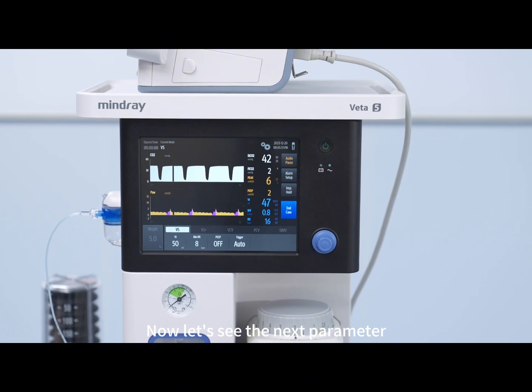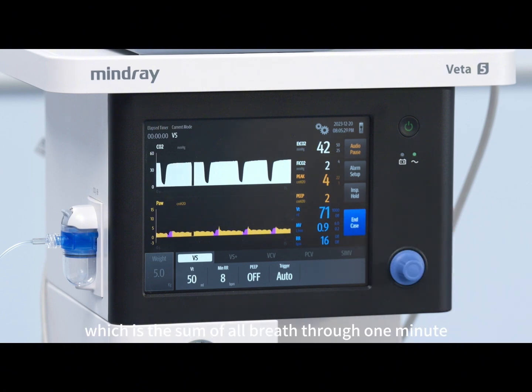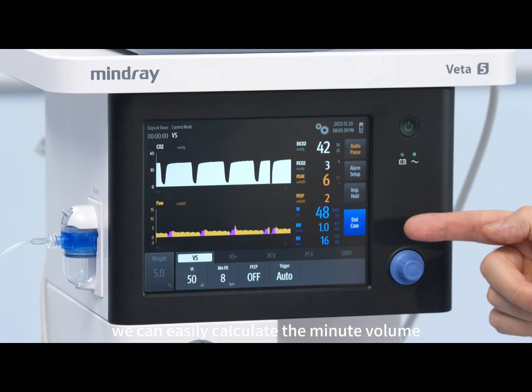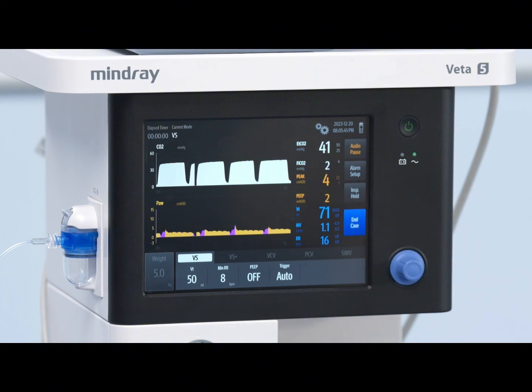Now let's see the next parameter. Vt here is the tidal volume in milliliters. In other words, it is the volume of a single breath. Mv here is the minute volume, which is the sum of all breaths through 1 minute. Rr here is the respiratory rate. If we understand this, we can easily calculate the minute volume by multiplying the respiratory rate with the tidal volume.